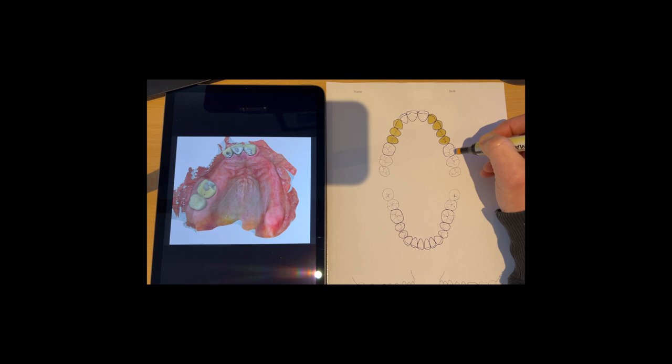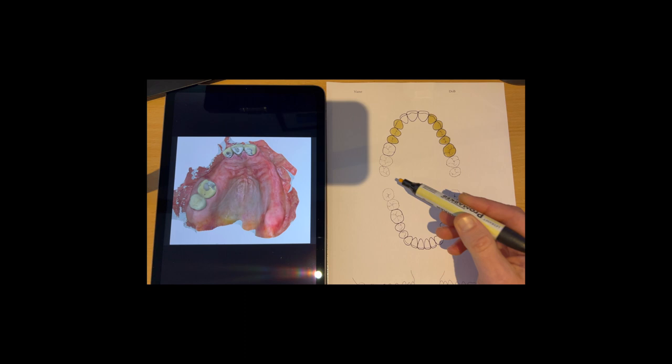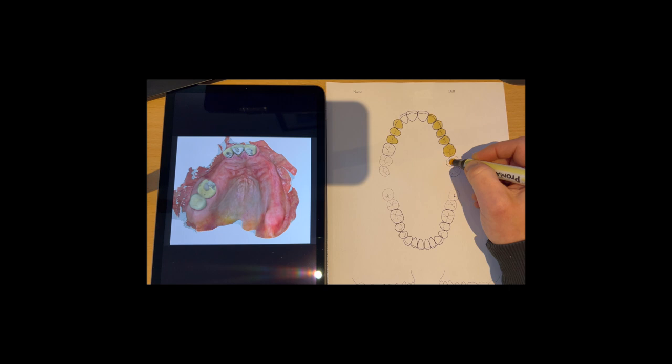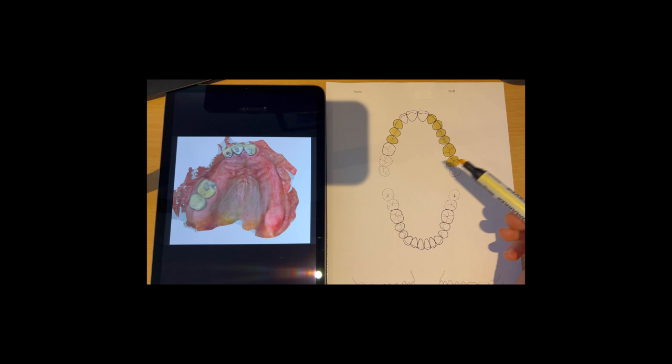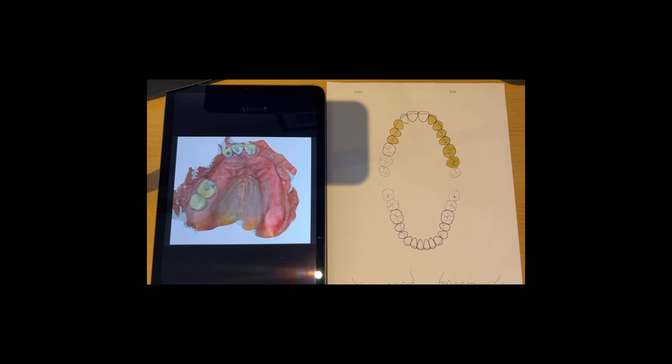Now because I don't have an opposing model, I'm not sure what teeth we've got at the bottom here, so I'm just going to have to guess at this point. If for instance the patient has full complement of lower teeth, I might need to put a tooth on just there as well. I'm just going to assume it's quite often the patient in the lower arch has a full complement of teeth. So this is what I do - first of all, we just color in what teeth are missing.